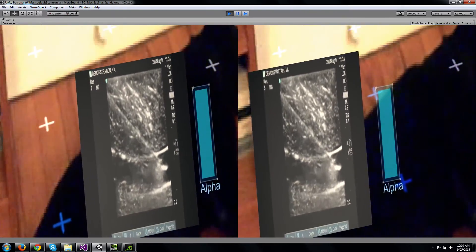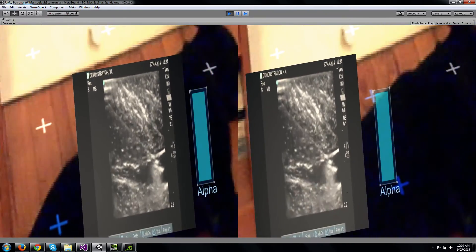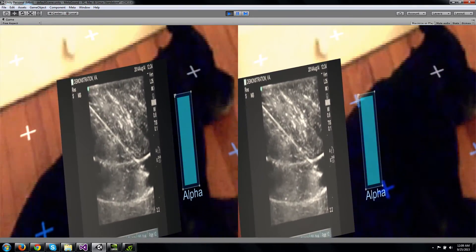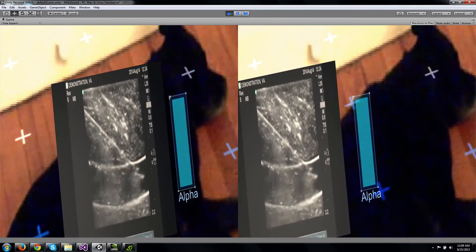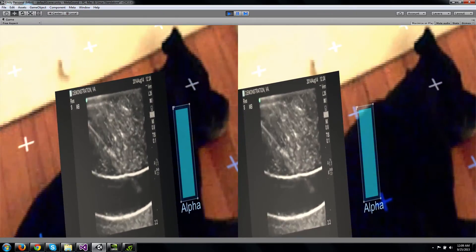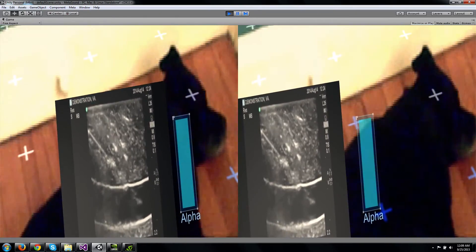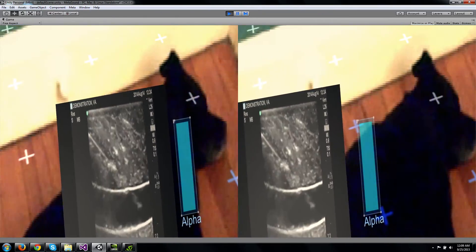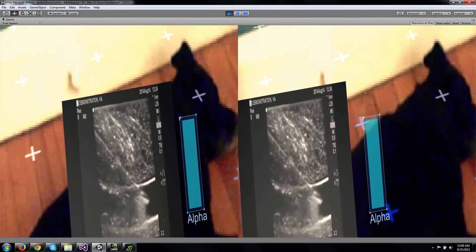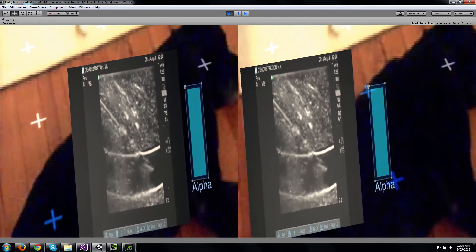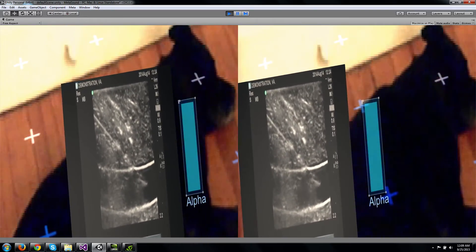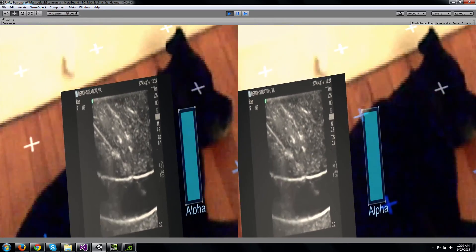That's day one at the Meta Workshop. I'd like to explain that some of these screen outputs look a little strange because first of all, you're seeing two views. I'm seeing this in stereo as I look through the Meta headset, so that's why you see two views. The resolution is also a little bit low — I don't have the maximum resolution set of the Meta camera. But all in all, it's not too bad for a day's work. Looking forward to tomorrow.